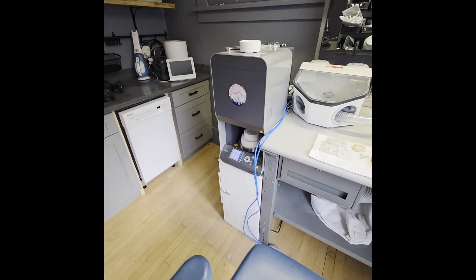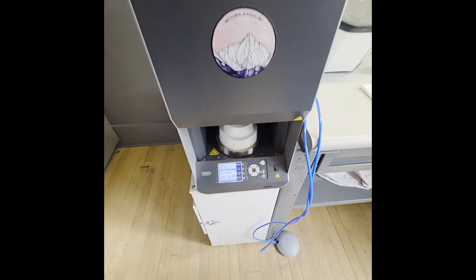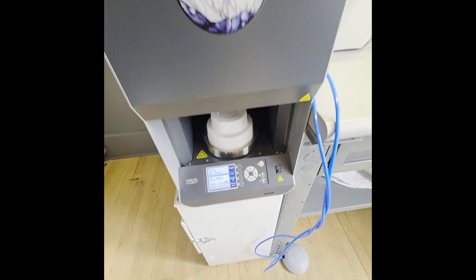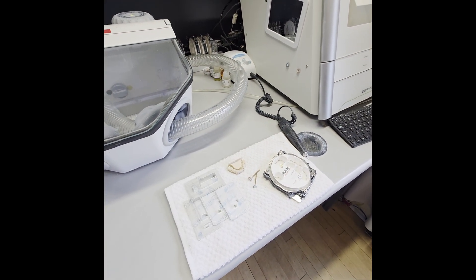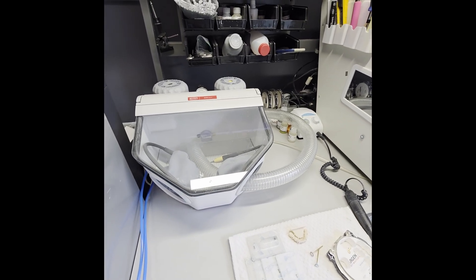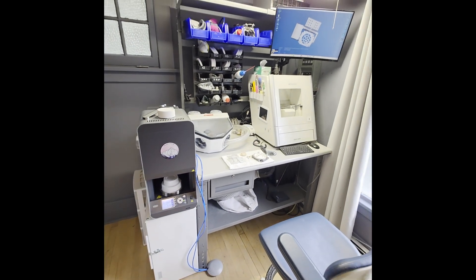And then it will go into the sintering furnace, which is right here. The KDF-Zircom typical cycle is about seven and a half hours at 1500°C. And then once it's fired, I'll polish it. There's a case that I'm working on here. And then it will be ready to go. There's a micro etcher here that I'll use on the intaglio surface before having the case ready. But this is pretty much it.